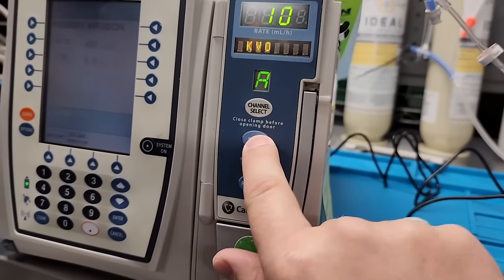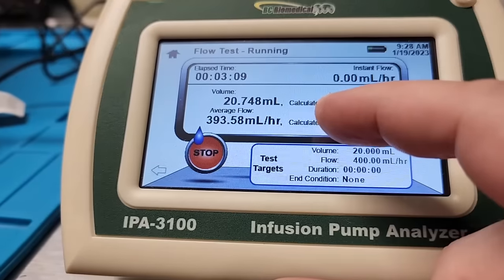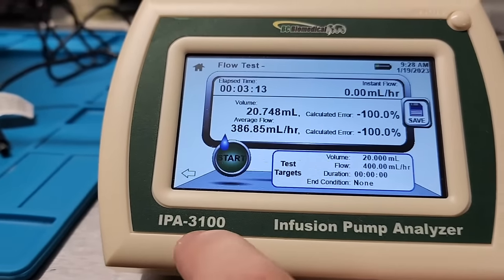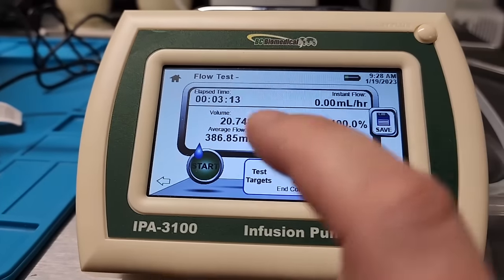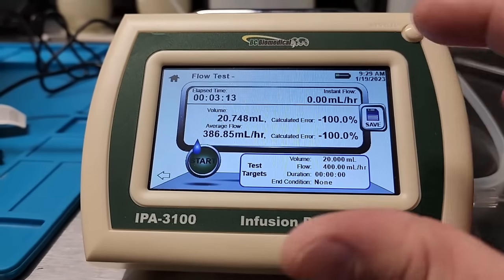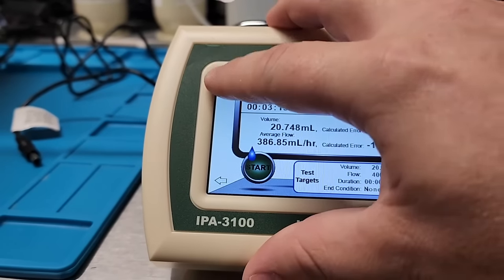Let's go ahead and channel select, pause. And right here you can see the average flow, as I was saying, it's going to change quickly. And as soon as it beeps, I should have hit stop. That way we could save our record exactly where it was at. That was pretty good. Let's go up to home.